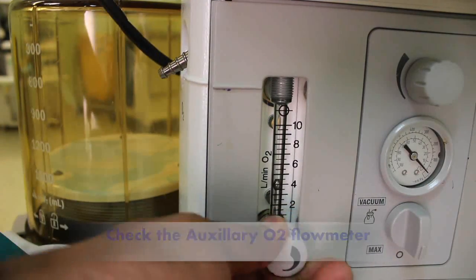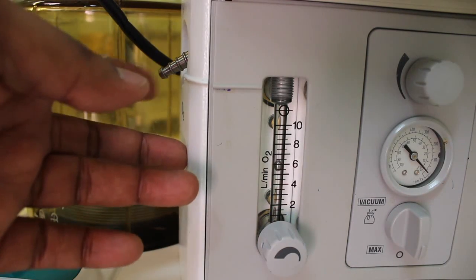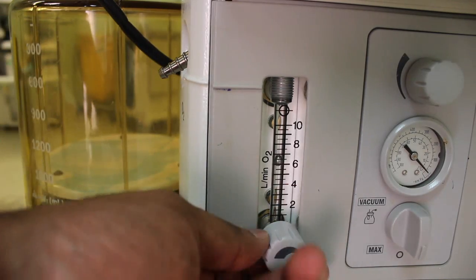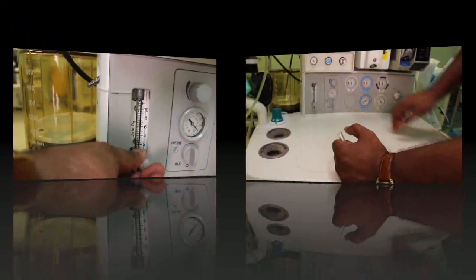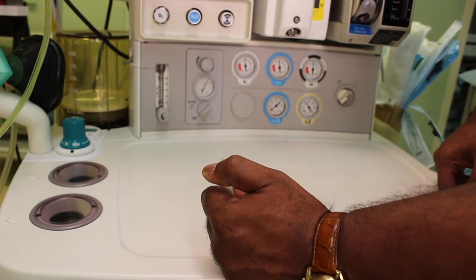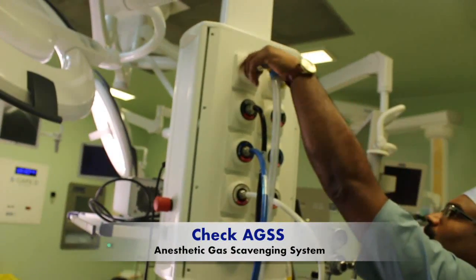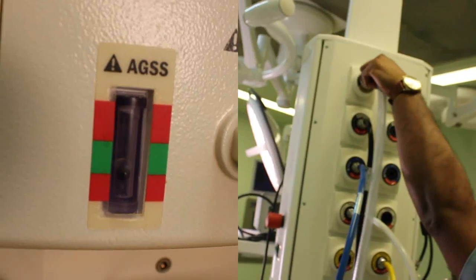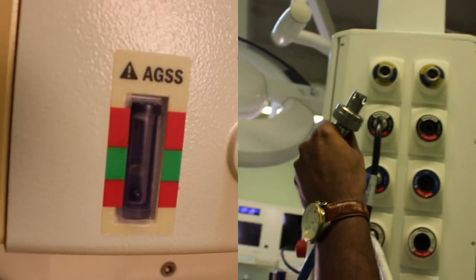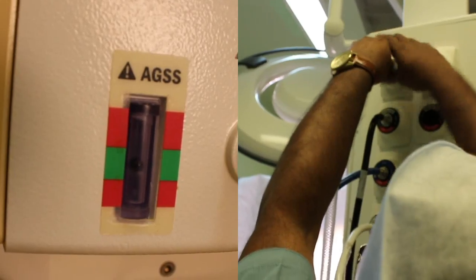Now we can check for auxiliary oxygen. While occluding the auxiliary oxygen outlet, the bobbin dips — remember to close the auxiliary oxygen flow meter. Check whether the suction source is connected and the suction regulator provides adequate suction. See that the scavenging circuit is appropriately connected and switched on. The AGSS indicator should be in the green sector.